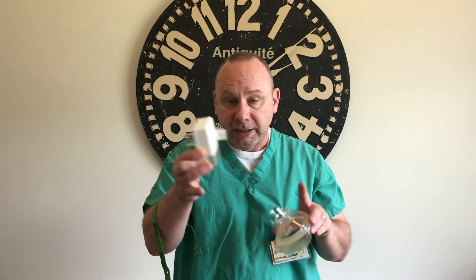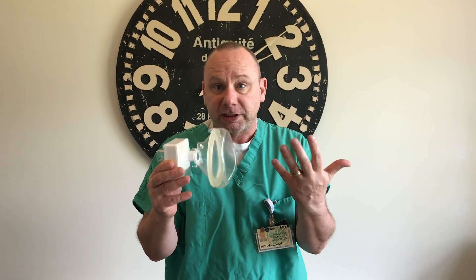We're not supposed to be bringing these things into patient rooms if it comes from another COVID room. If you're on a COVID unit where you're going in between COVID patient to COVID patient, then you should be able to just put this on and keep it on throughout the day. This is not nearly as comfortable as the CPAP mask — that's way more comfortable, much easier to speak and people can hear you better. But this works to protect your airway, it's much more readily available, probably much less expensive, and you have access to this stuff already.